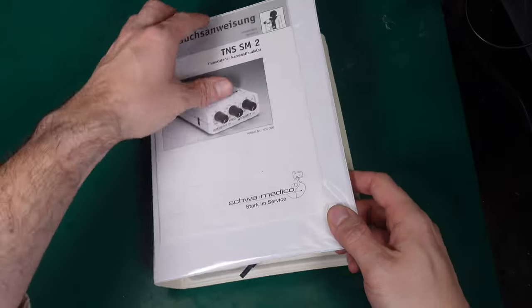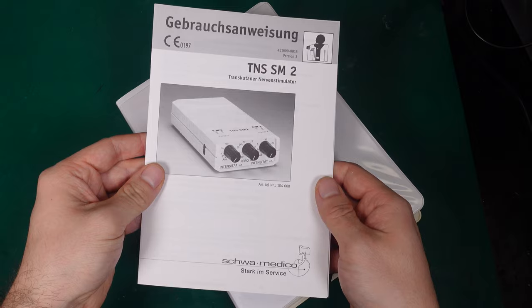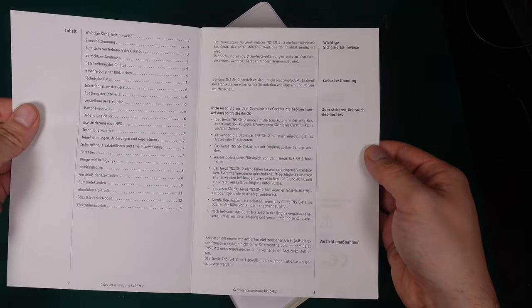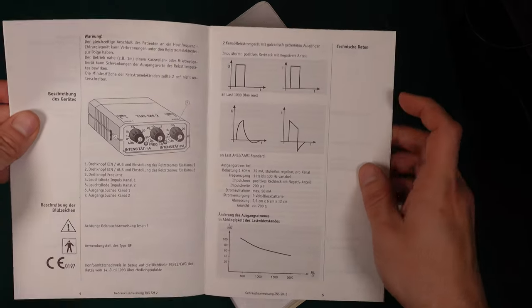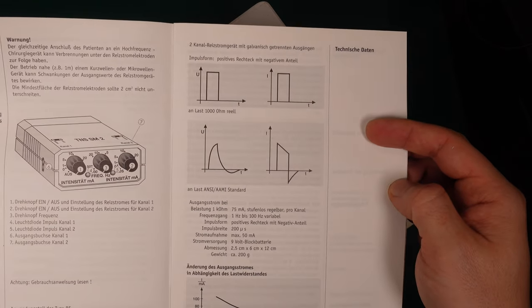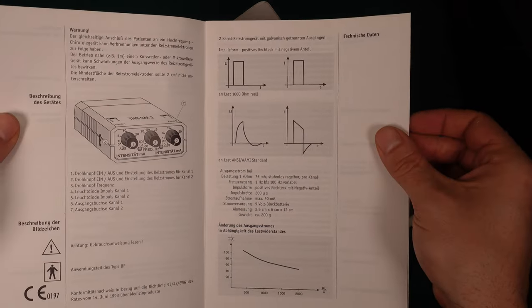I found this unit interesting because of the user manual. If you are interested, here is the user manual, but I'm only interested in one part of that and it is the oscillogram that's going to show you what's going to be happening.